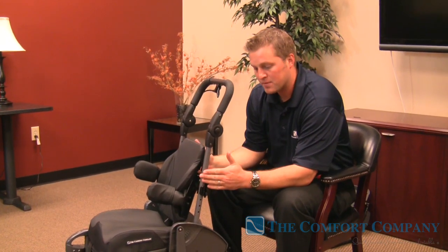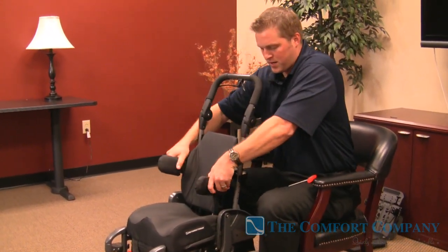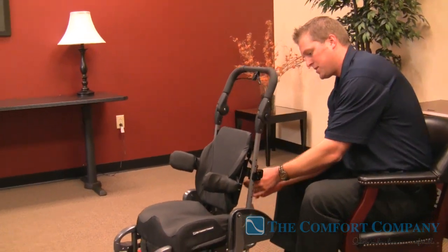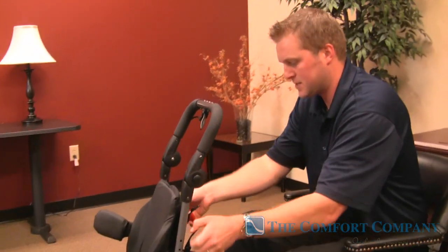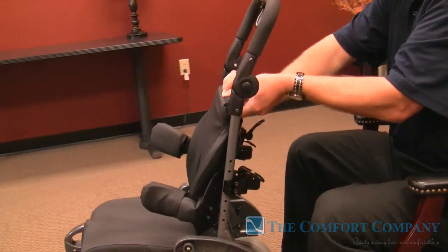You're going to be able to grow the frame up to two inches greater than what you ordered: order a 12, grow it to a 14; order a 14, grow it to a 16; order a 13, grow it to a 15. The all-inclusive nature of this system — being able to adjust and move it — and I can't wait to talk about the dynamic feature of this system, because it's the only one out there that offers it.